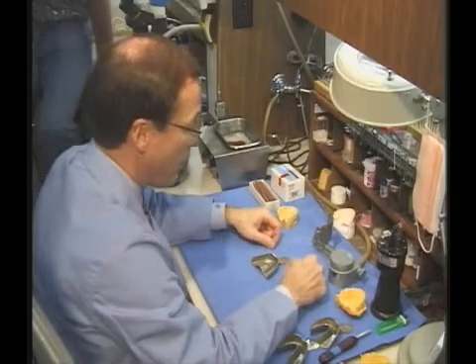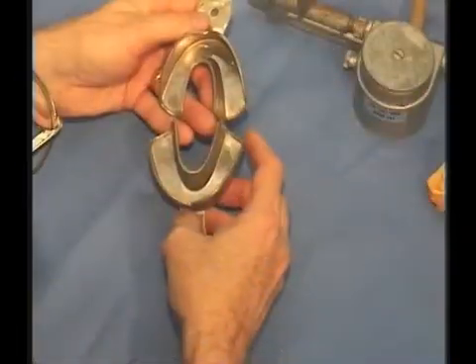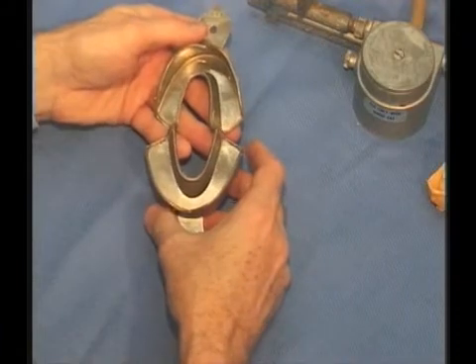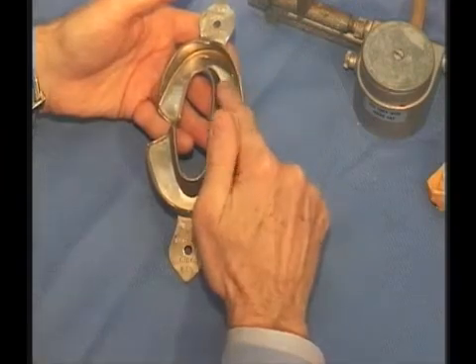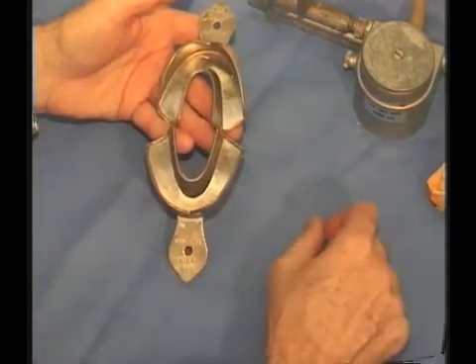Selection of the tray is very important for the accuracy of impressions and casts. To understand this: if we need more room for the lower tray, which would mean a larger tray in our thinking, we actually have to go to a smaller size tray, so that lingually it's more narrow, which gives us more room.